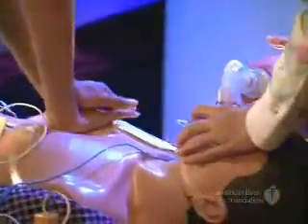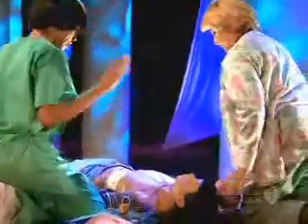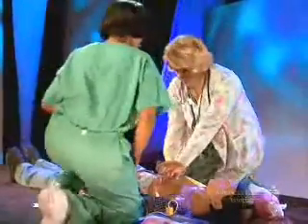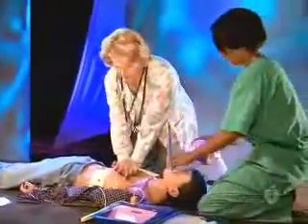When the shock is delivered, the victim's muscles will jerk. The AED will then tell you to start CPR, beginning with chest compressions. Begin CPR. After five cycles of 30 compressions and two ventilations, pause for the AED to analyze. Analyzing heart rhythm. If indicated, press the shock button and switch rescuer roles. No shock advised. Begin CPR. Repeat this sequence of CPR and AED use until advanced life support providers take over or the victim starts to move. Now you know how to use an AED with two rescuer CPR.